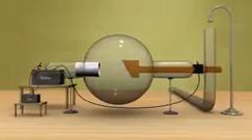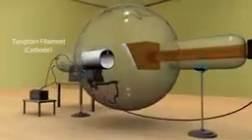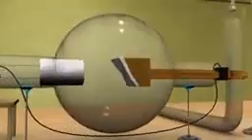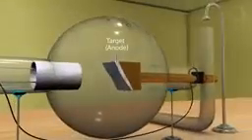It contains a highly evacuated glass bulb containing a cathode, which is a tungsten filament, and anode, which is a target made up of metal of high atomic weight.